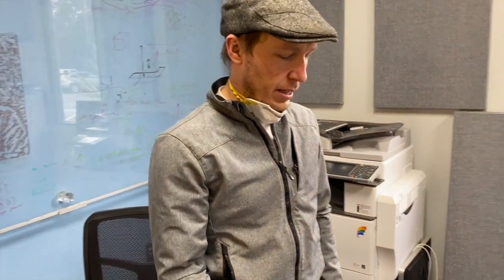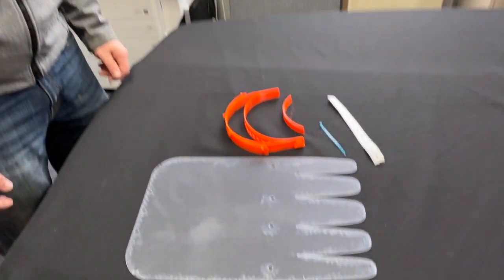So this is the assembly of the Prusa RC2 face shield.